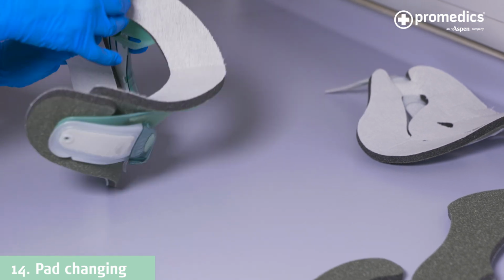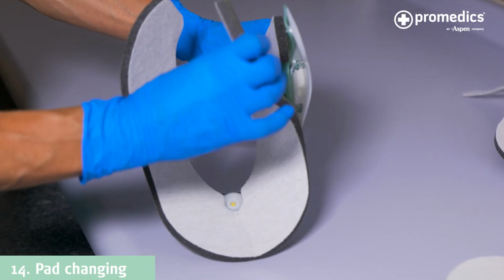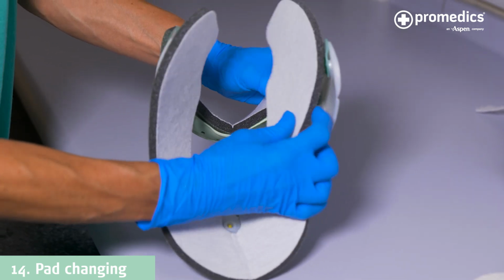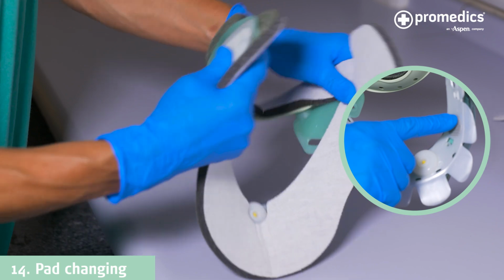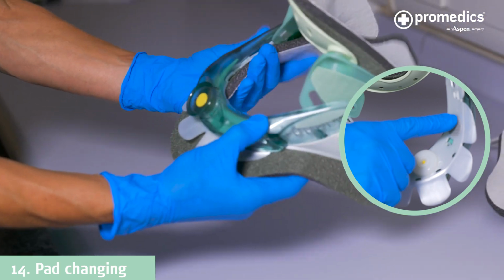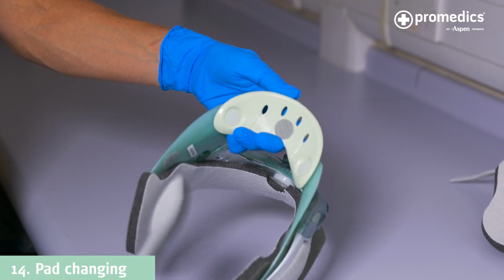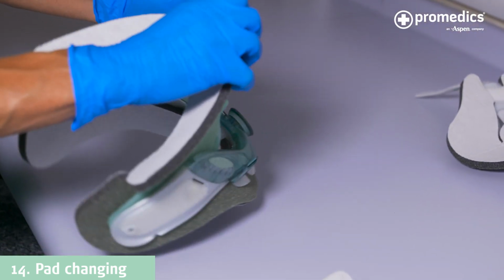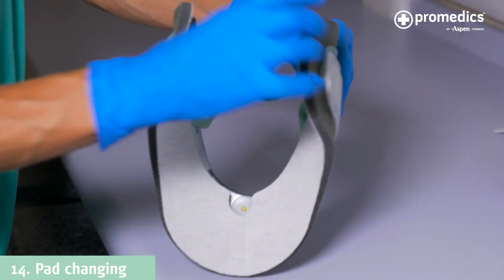To remove the pads from the front panel of the collar, lift off from the Velcro tabs. To reattach the pads on the front of the collar, properly align the bottom larger pad with the corresponding Velcro dots and the plastic circle component of the collar. For the upper pad, ensure that the top piece covers the front and rear edges of the plastic components and is attached to the Velcro dot on the chin piece.